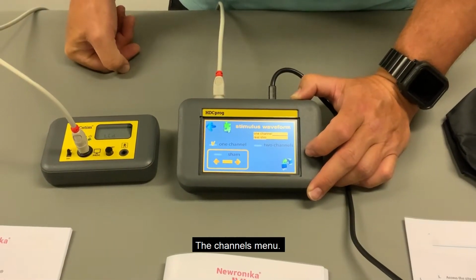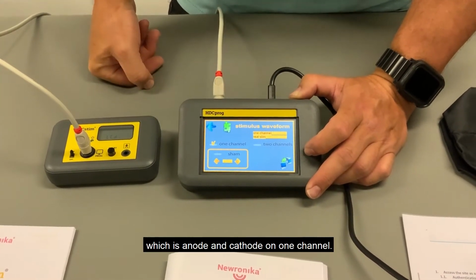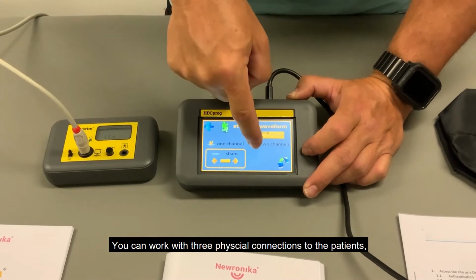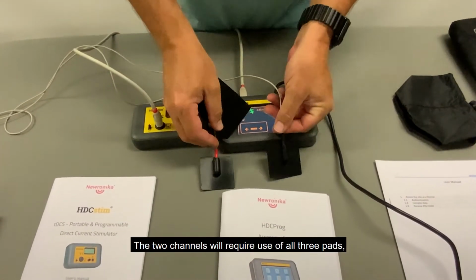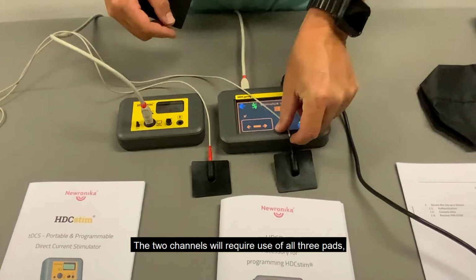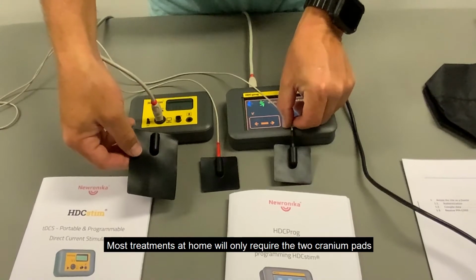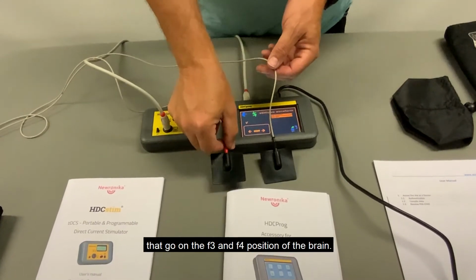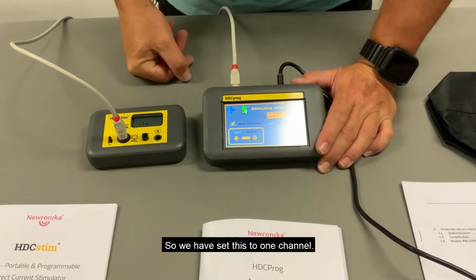The channels menu. Most of your treatments will be with one channel, which is anode and cathode on the one channel. You can work with 3 physical connections to the patient, which is 2 channels. The 2 channels will require use of all 3 pads, the 2 cranium-based pads and the larger arm pad. Most treatments at home will only require the 2 cranium pads that go on the F3 and F4 position of the brain. So we have set this to 1 channel.